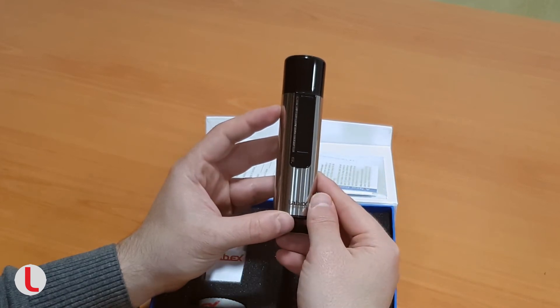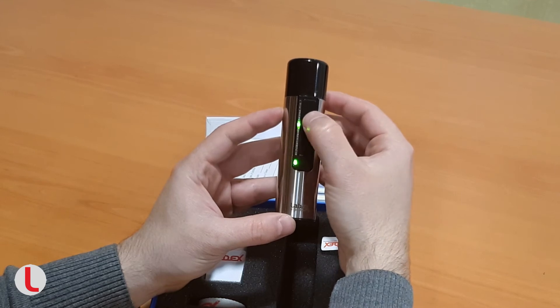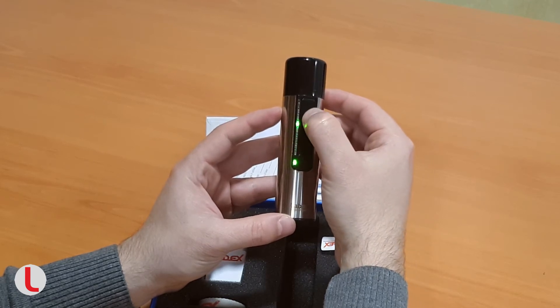The variety of options include the following groups. Intonational variations. Standard: regardless of the touch position, the starting pitch is fixed. Sliding up and down the slider will raise or lower the pitch.